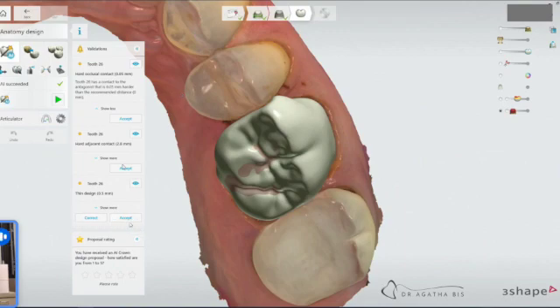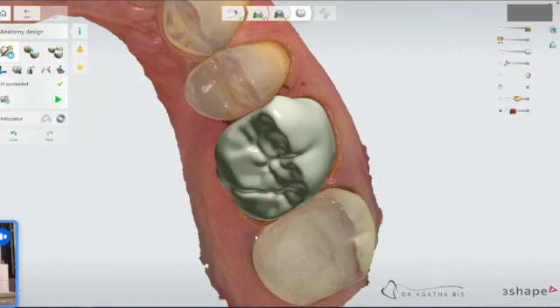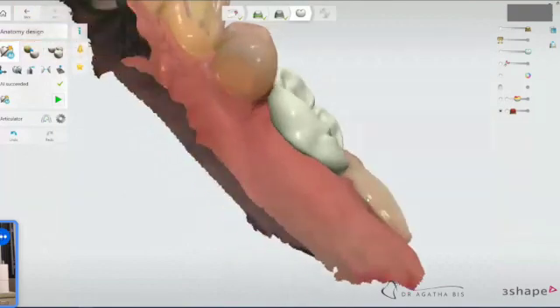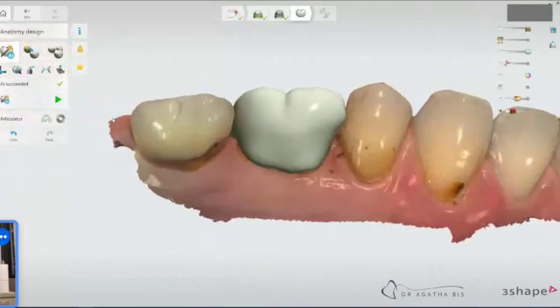Usually what I'll do is I'll actually just correct any thin areas initially. So if there is something like that, I will let the software correct it. And then first thing I'm really concerned with is the contacts.